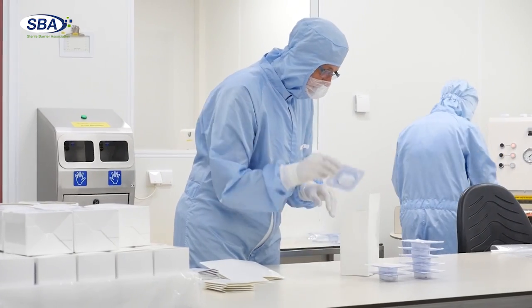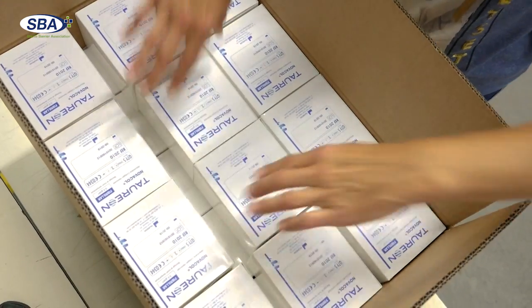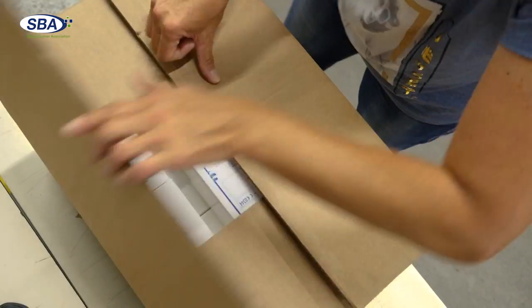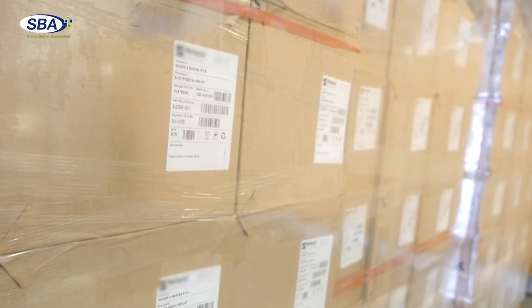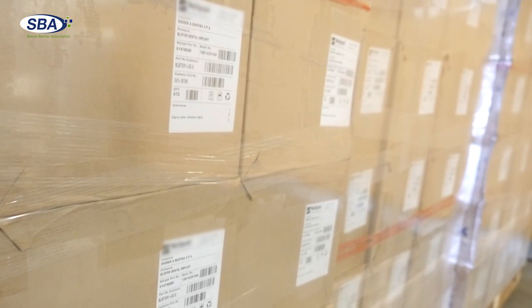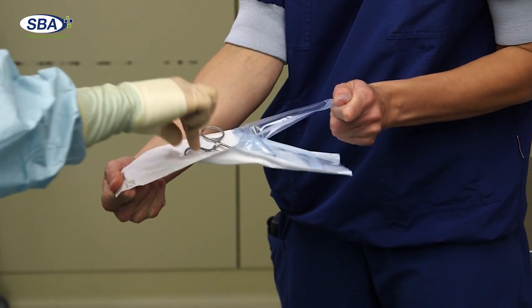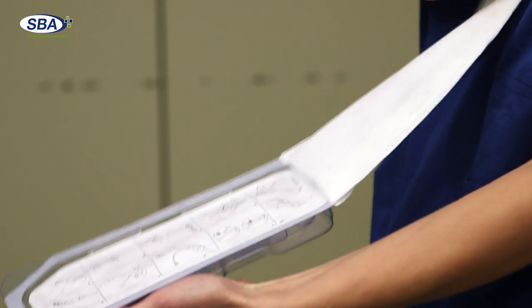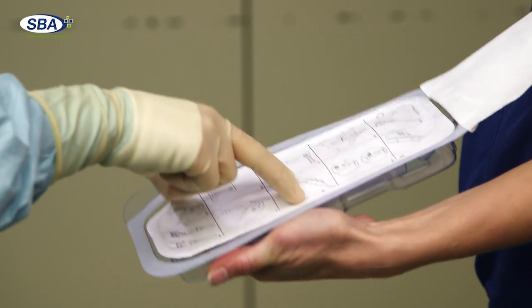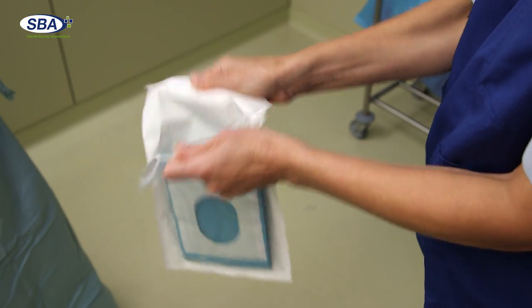In addition, sterile barrier systems, along with their protective packaging, allow sterile medical devices to be safely transported, stored, accurately identified, and traced at all times. Maintenance of sterility at all times is critical. Finally, the design of sterile barrier systems must allow aseptic presentation, which means that any risk of recontamination during opening and removal of the sterile product is minimized in order to protect the patient.